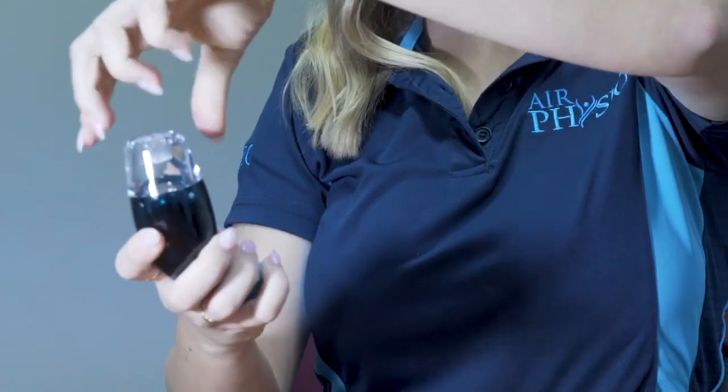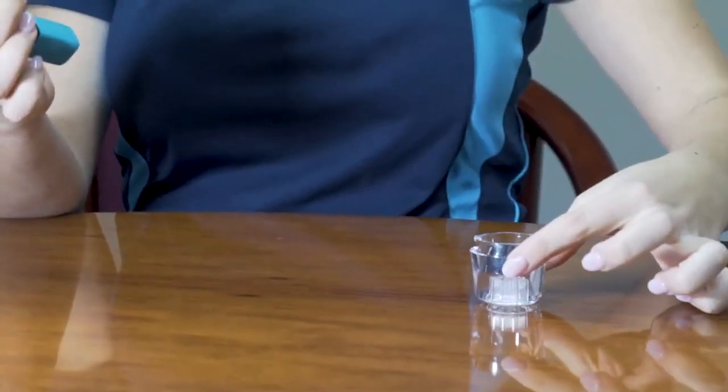How does Air Physio work? Air Physio works similar to your body's cough mechanism.